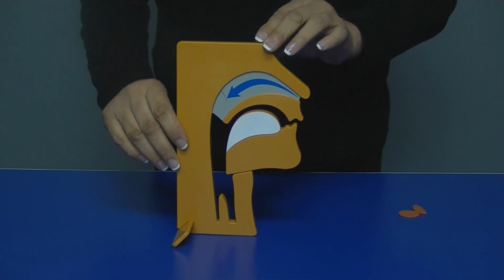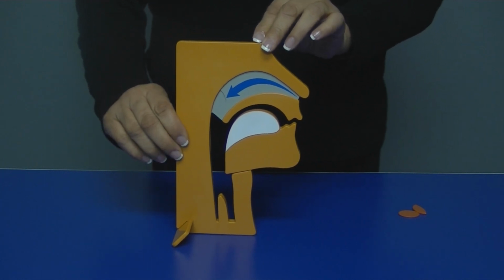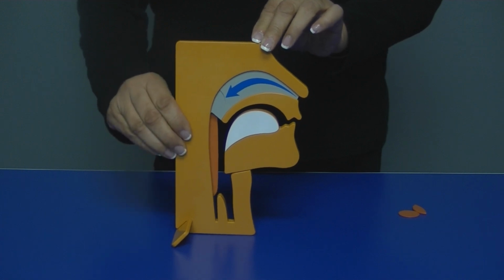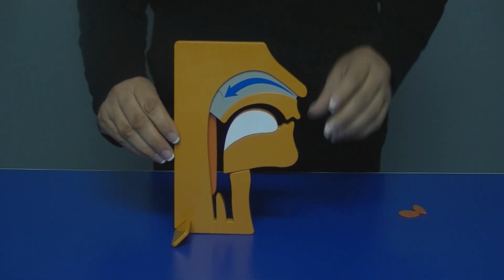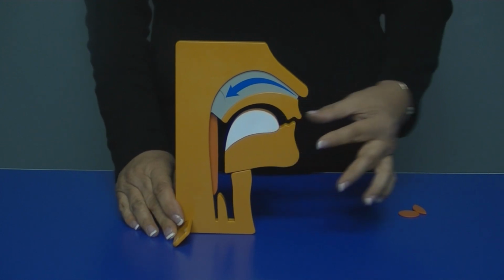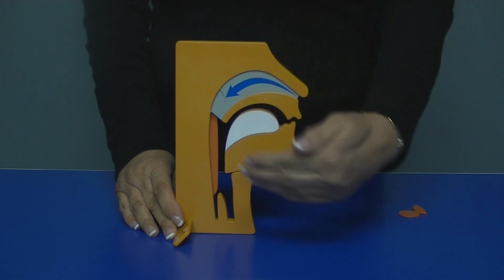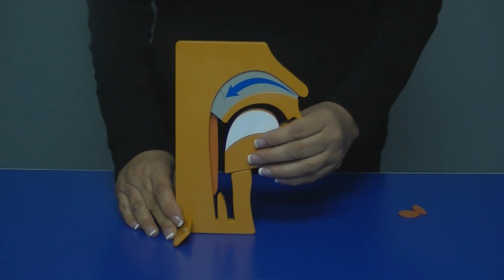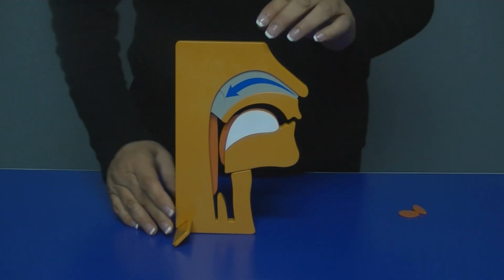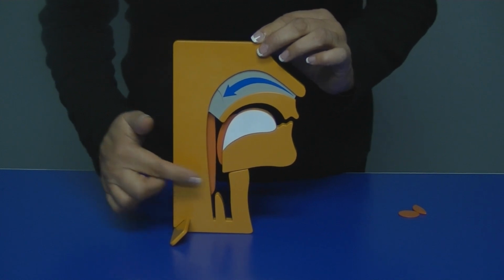It has 3 movable parts so that you can show the patient if they have swollen tissue in the back of the throat by sliding that forward. In addition, sometimes there's fatty deposits or the tongue is actually swollen from all the battering that takes place with the chronic snoring. Then you could show that the tongue is enlarged and how constricted that becomes in the airway.